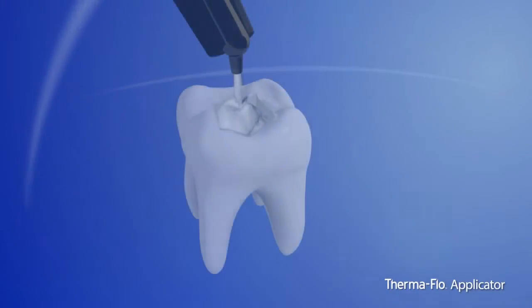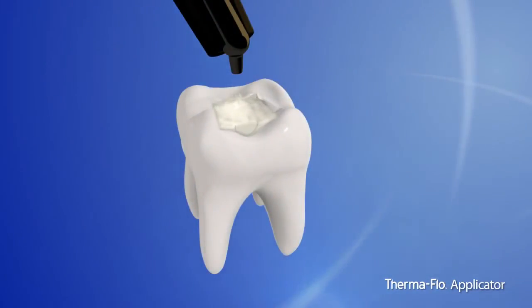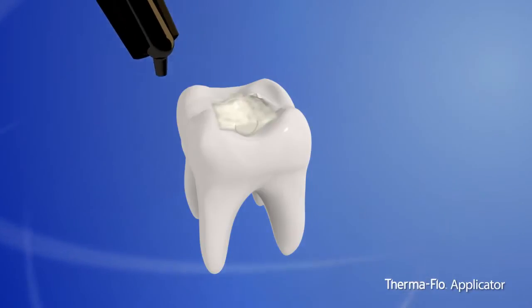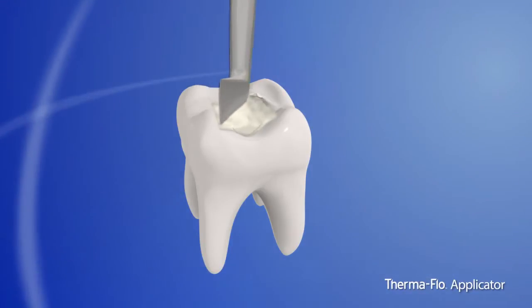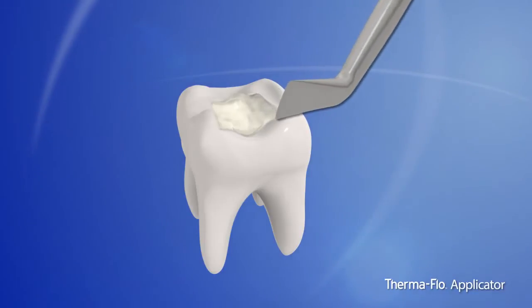With the applicator, you can now reduce incremental layering of composite in challenging posterior restorations. Experience superior composite adaptation to cavity walls, improving quality and efficiency of your restoration.